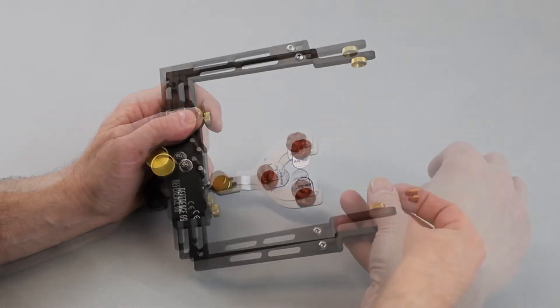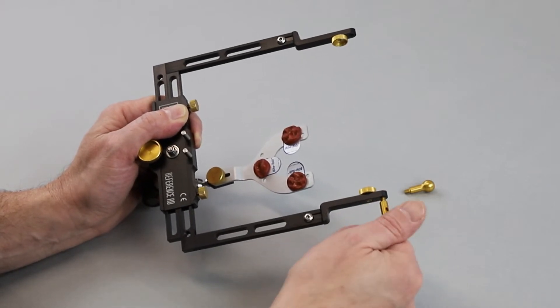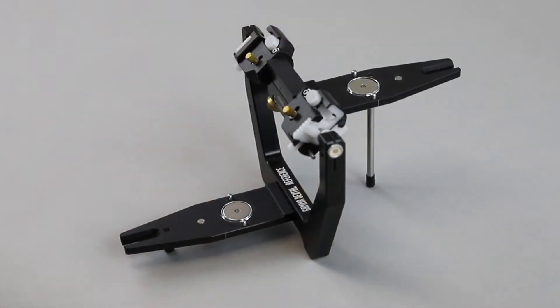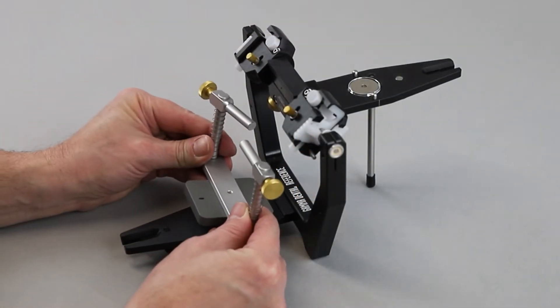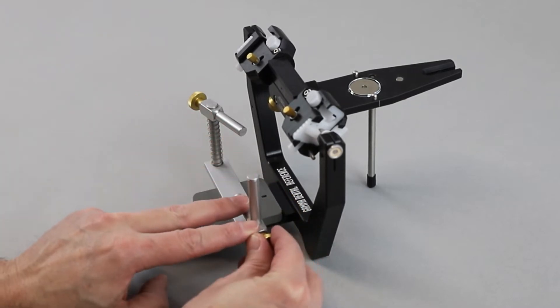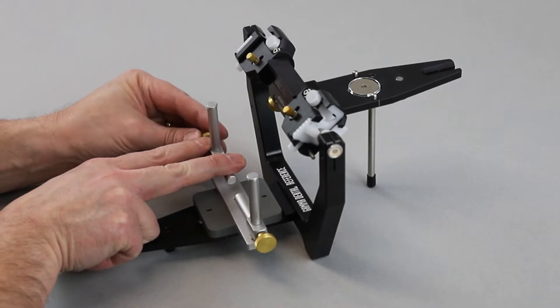Our tip: if the porus supports are screwed back in on the outside of the face bow, they cannot get lost. Attach the face bow support and the bite fork support as shown. The supporting bars of the bite fork support must be moved downwards and fixed.